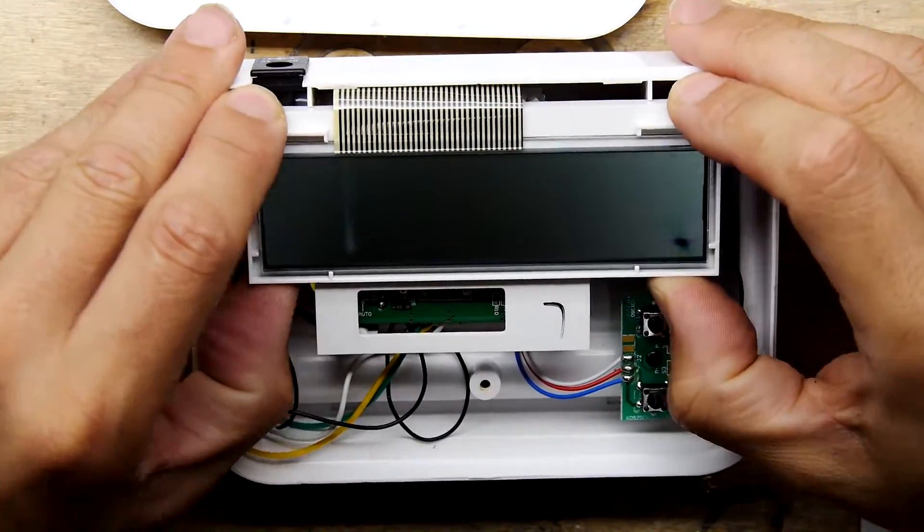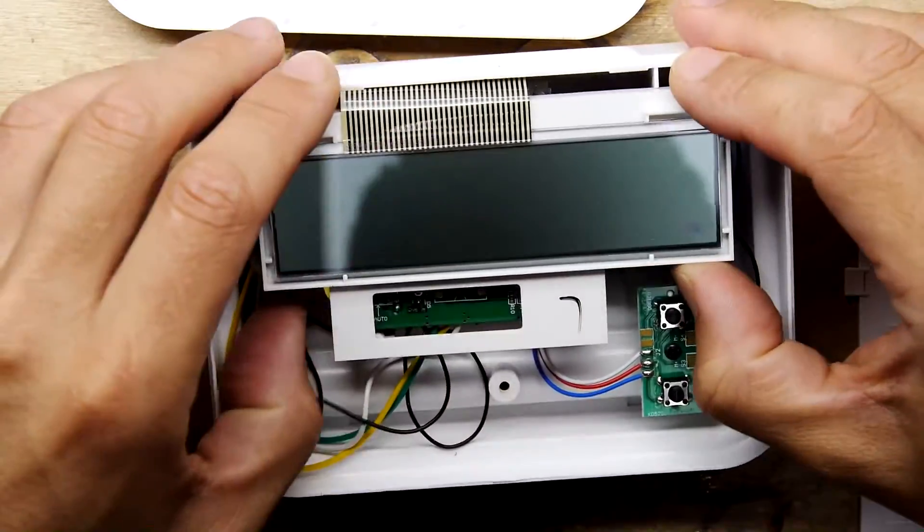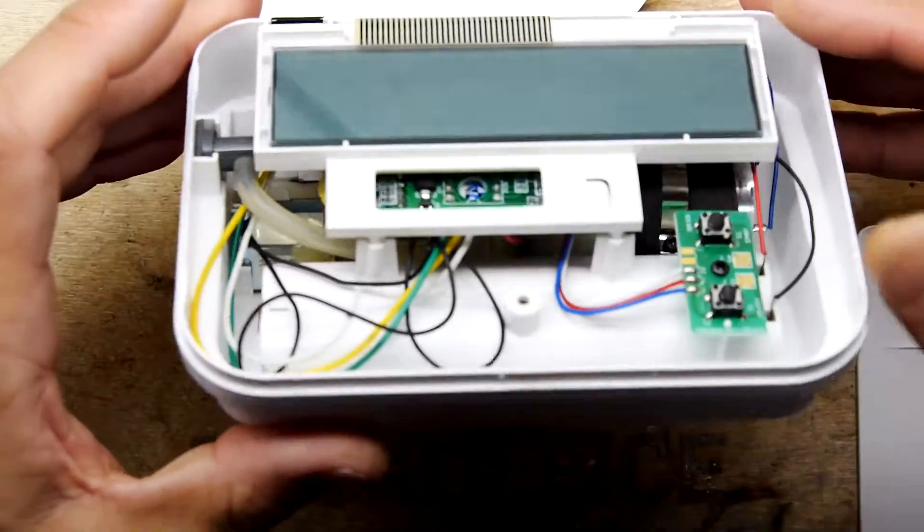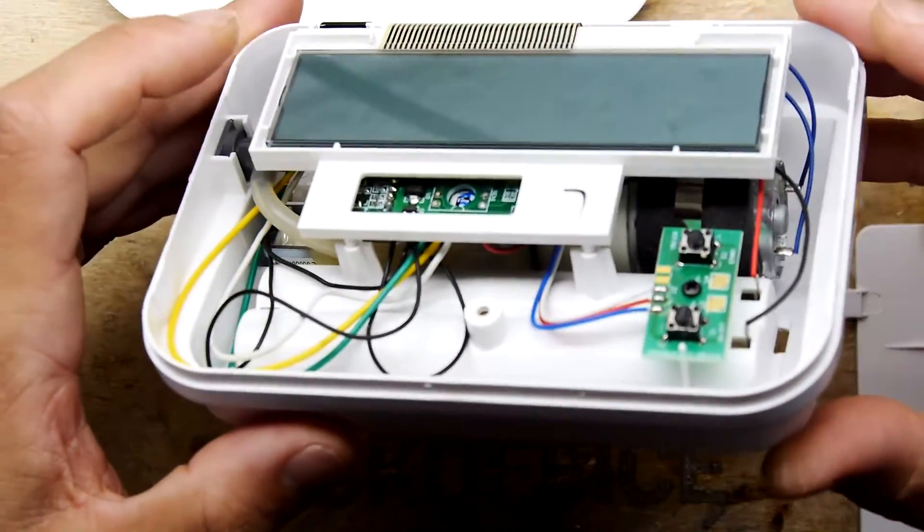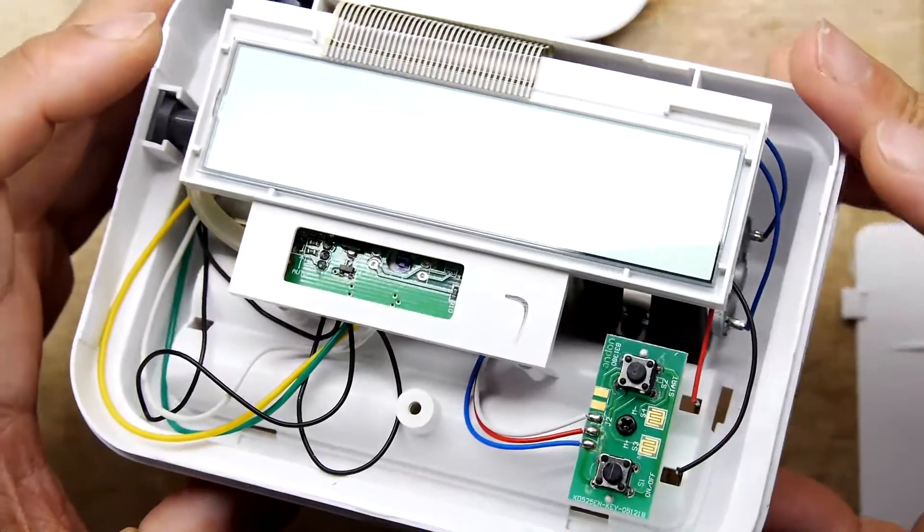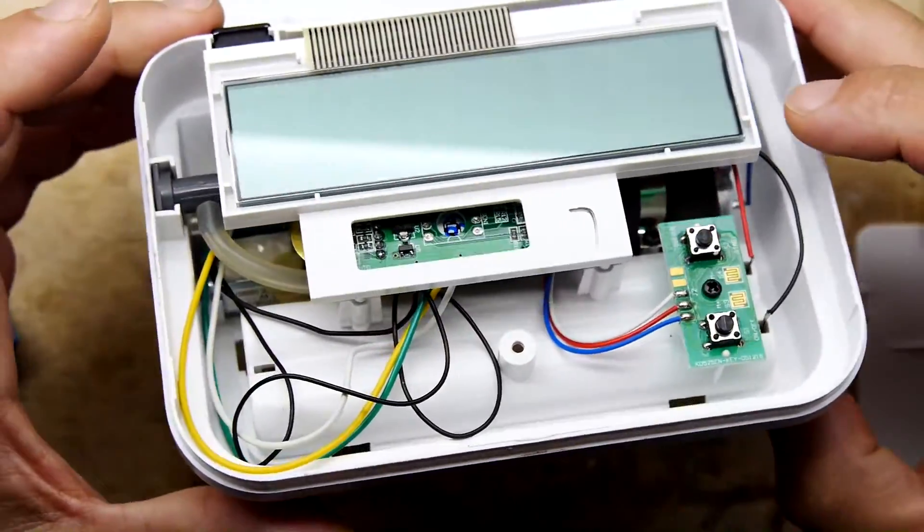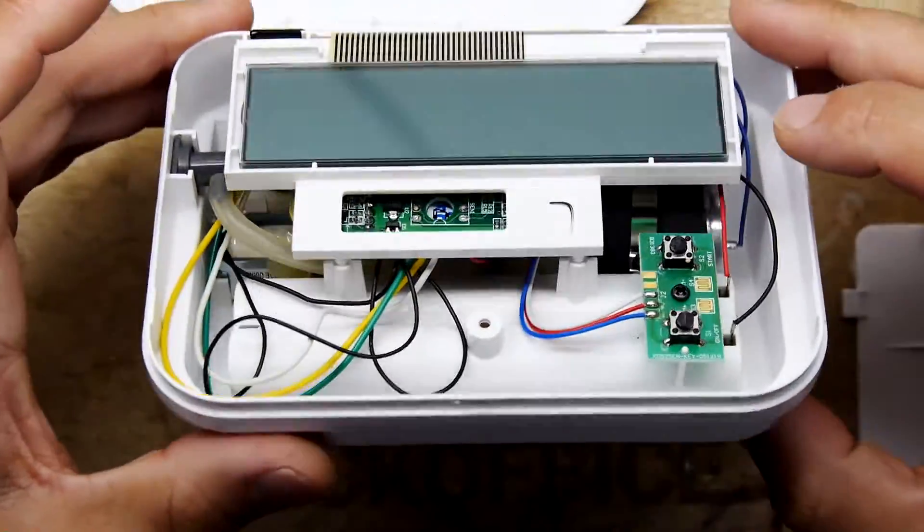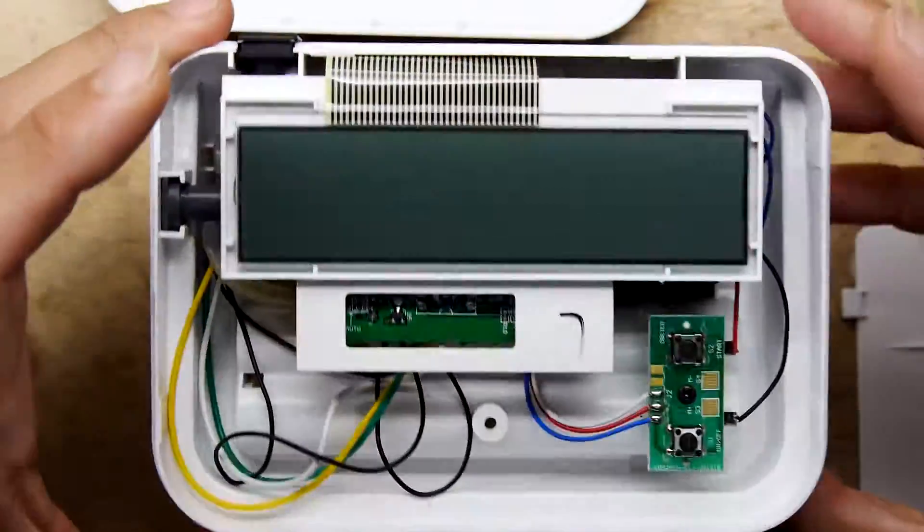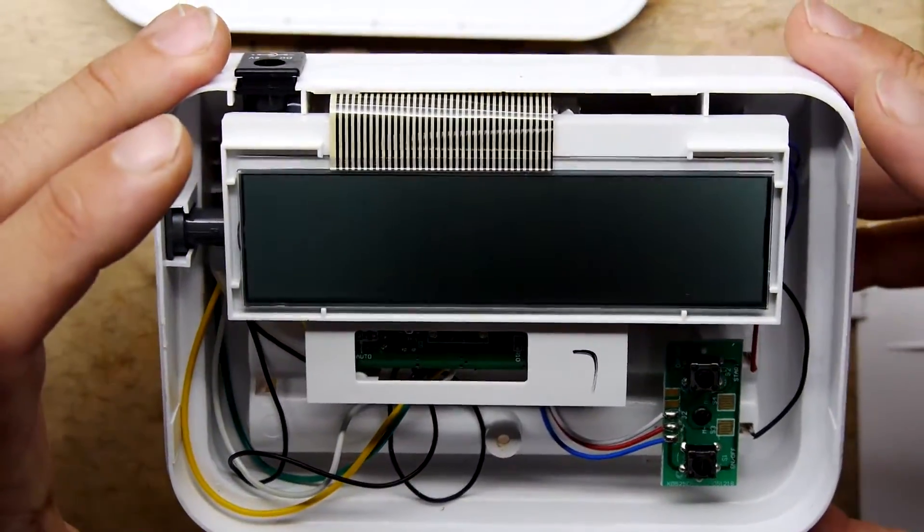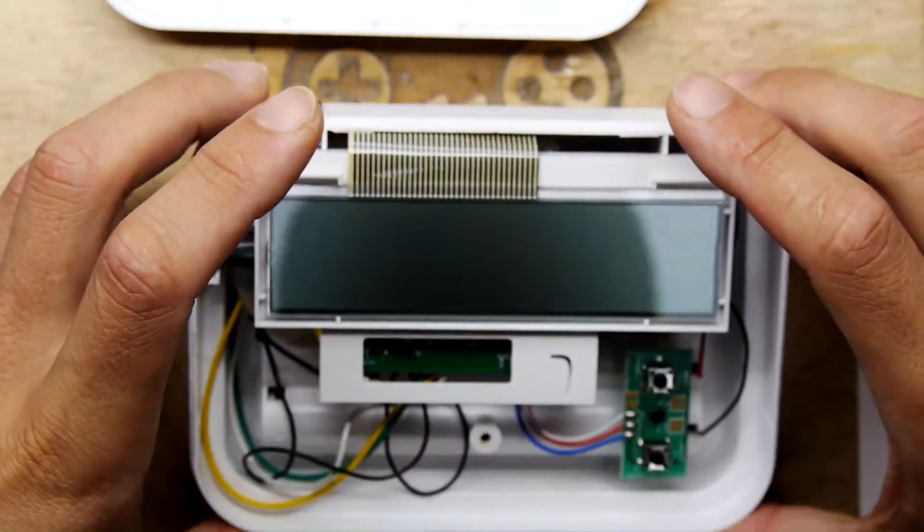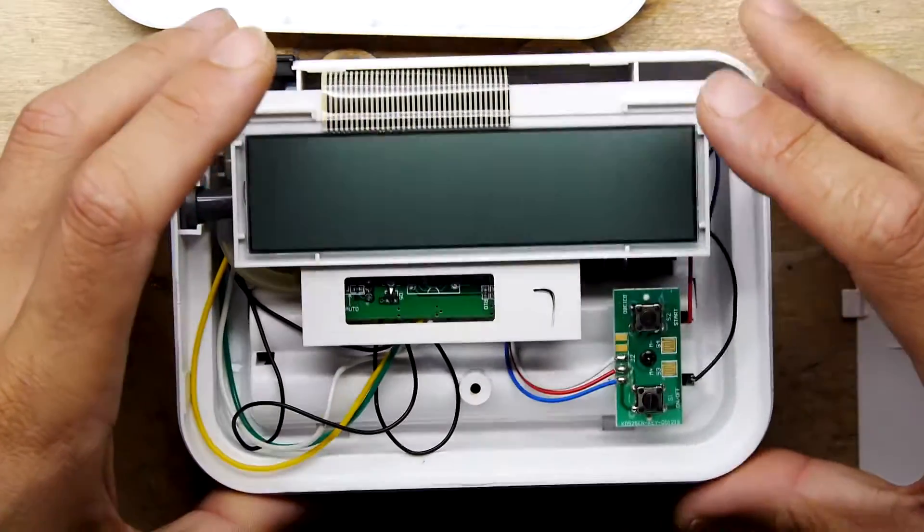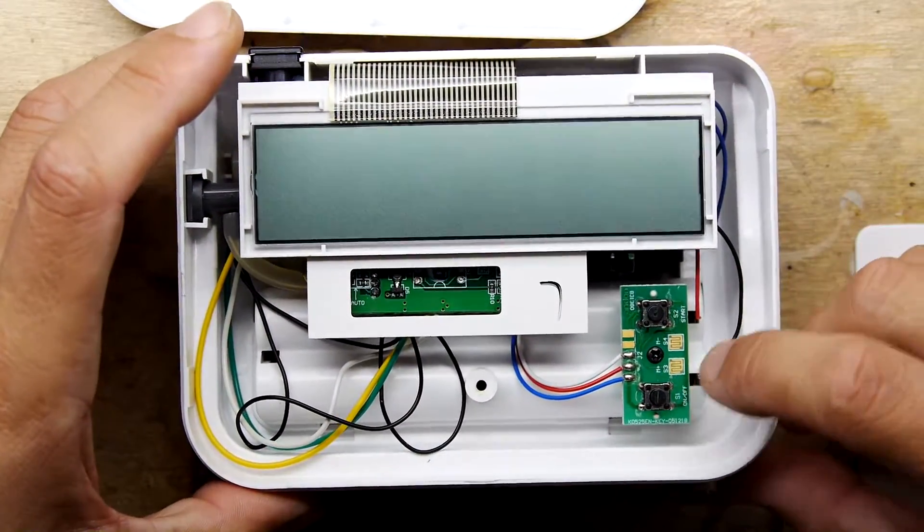So you've got the screen and that's just a standard little LCD screen, but nice, nice big clear one. Looking underneath, I can see the motor and the pump and everything. There's loads of cool things in this. So this is going to be fun. And look at that.